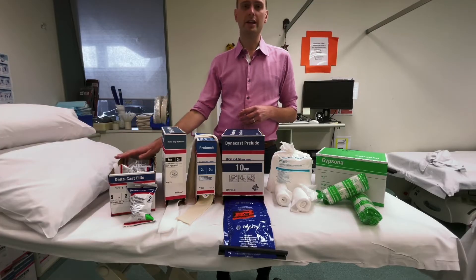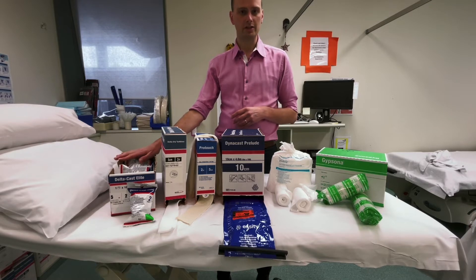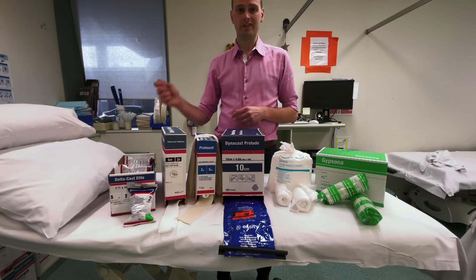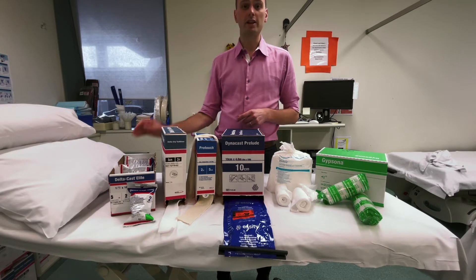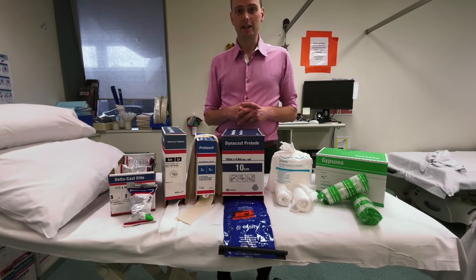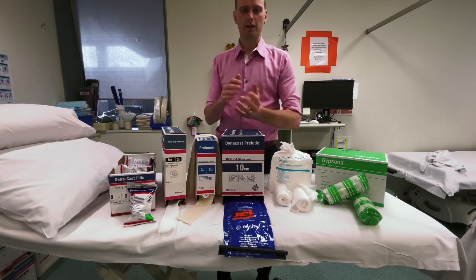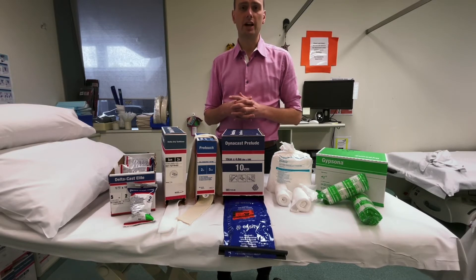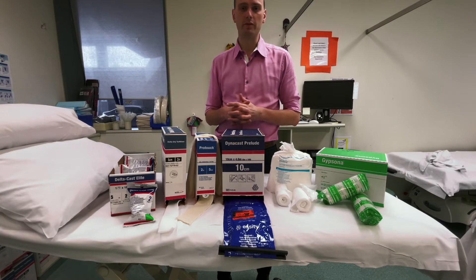The alternative is what we call synthetic. A lot of people call this a fiberglass cast, but it's very rare to use true fiberglass because of the shards formed when you use a plaster saw to remove it. So most of the time we use polyester, which is what I've got here today. You can choose your colors with synthetic material. It's not as easy to draw on, but it has a bit of a spring to it, so when you're molding you need to hold it for longer, and it's not preferred for fracture reductions where you need careful molding and close conformity with the skin.